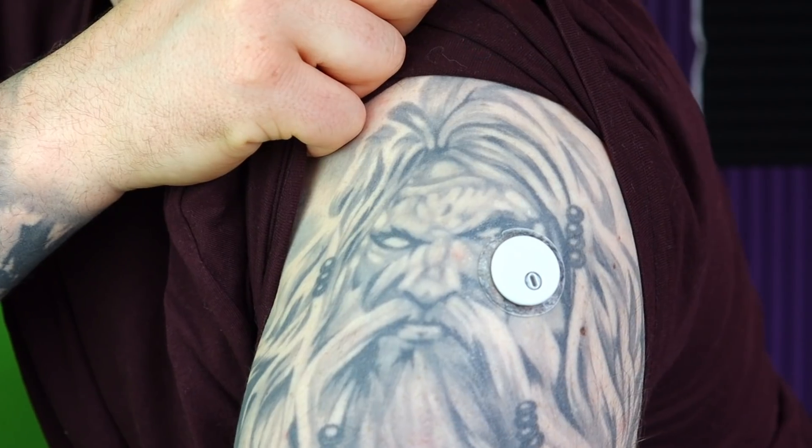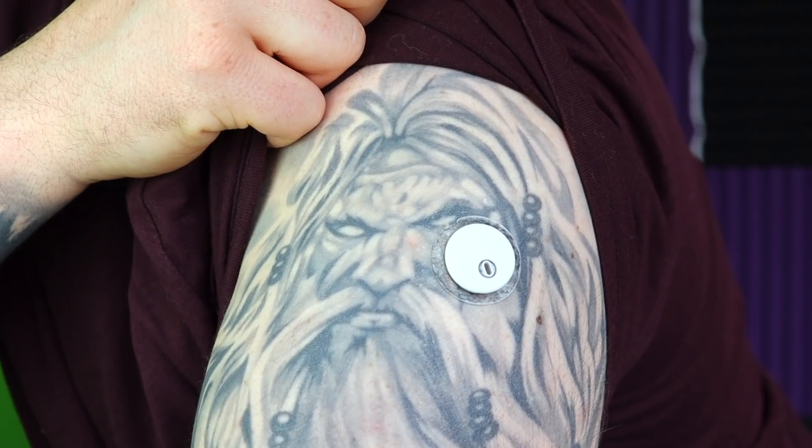Toby, I see the sensor is so small — how does it feel wearing it? Do you even feel it? The feeling of the sensor just goes away. Also, I haven't got the feeling that the sensor will come off easily. In my opinion, the sensor is very secure. So what I'm hearing so far is: Freestyle Libre 3 is more comfortable to wear, it's less bulky, it sticks better, and it's a true CGM. But what about accuracy?